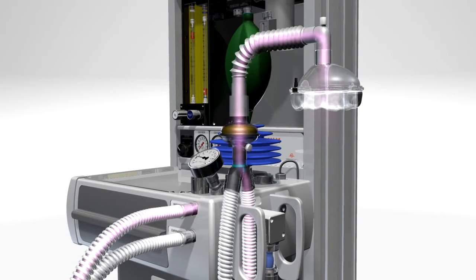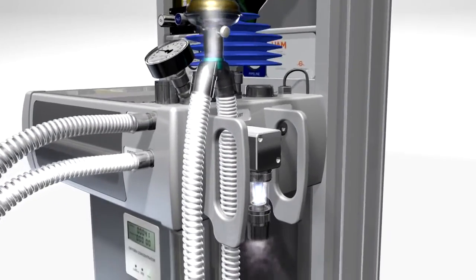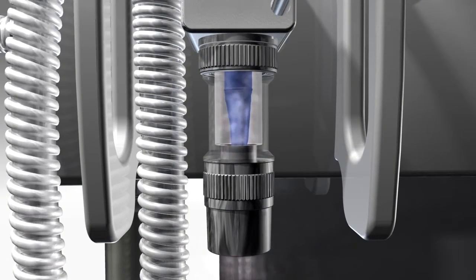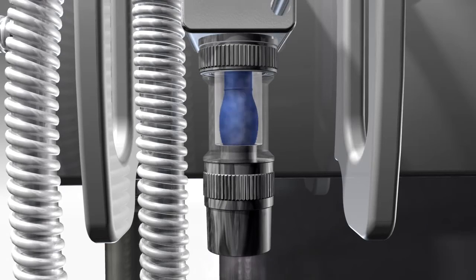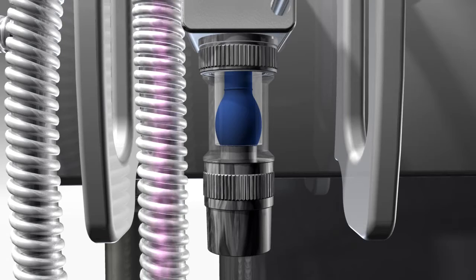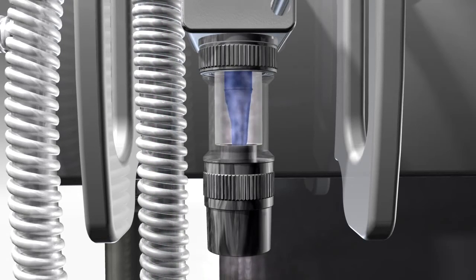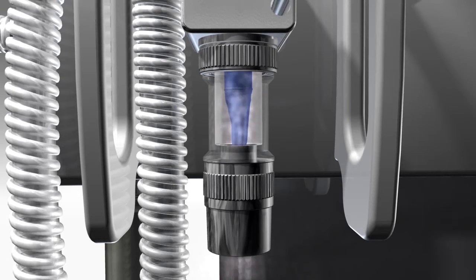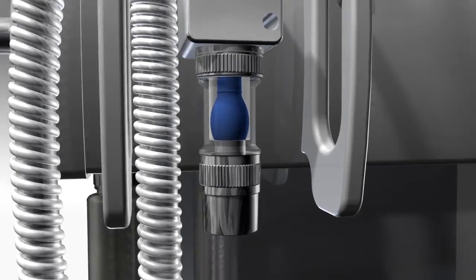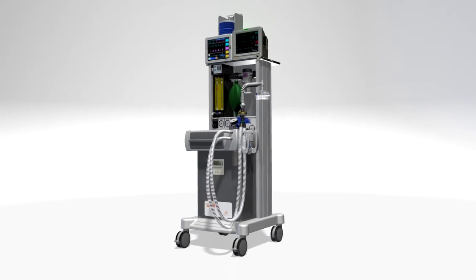The expiratory limb of the Y-piece channels gas to an inflating valve on the UAM that functions like an Ambu valve. It uses a balloon made from long-lasting silicone, which closes during inspiration to direct gas into the lungs. During expiration, the balloon empties and opens the exit port, allowing exhaled breath to flow out through a final one-way valve to a scavenging device. The UAM always produces the correct supply of anesthetic gas for the patient in any environment where surgery is performed.